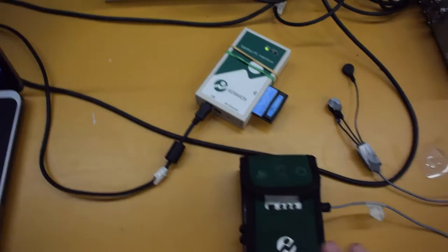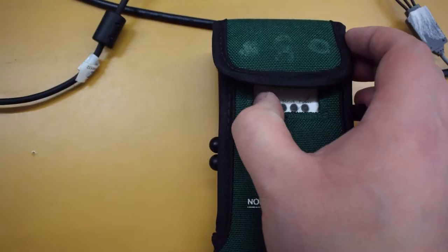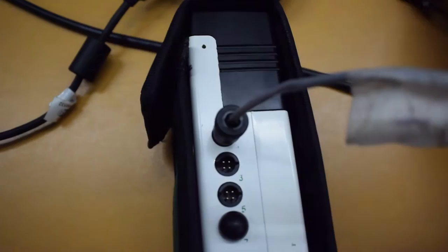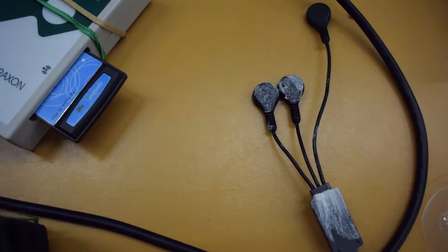The next thing is the adapter that actually holds the leads for the EMG. You want to slide the button over. And once again, you will see lights. Now for this test, as I said, we are in channel one. So you will see we are in channel one there. And we select the electrode that has three leads. Your two for EMG, and then your one ground.